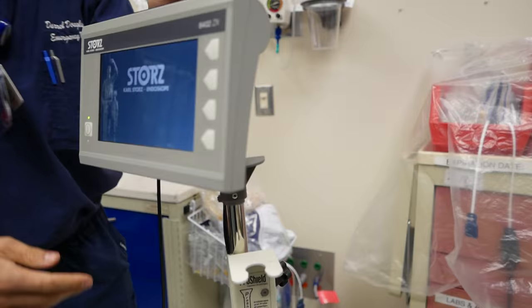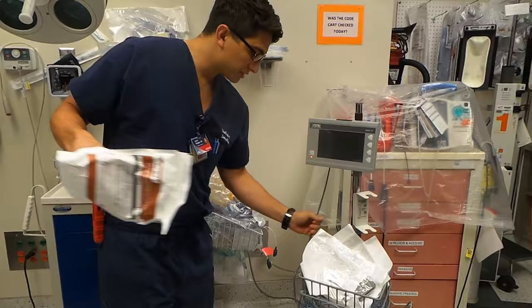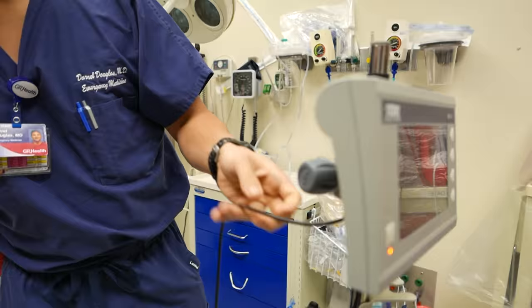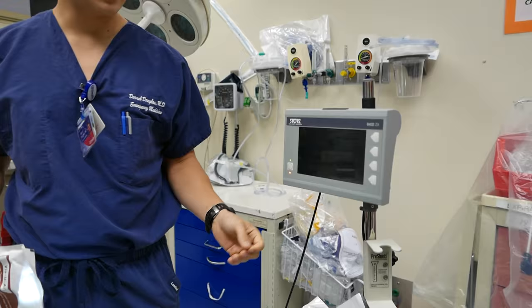This is battery operated, so you can turn it on without it being plugged in as long as it's well charged, but just leave it plugged in if you can. And then we get around to the scope — this again is going to be connected with the black end here. The arrows line up pretty simply there, same as the power cord.